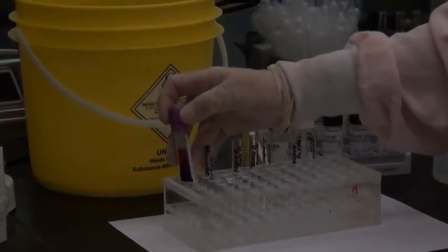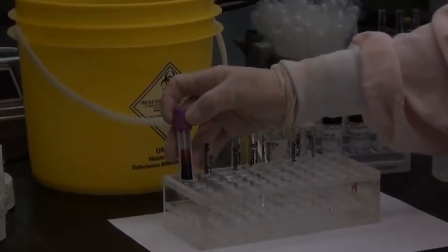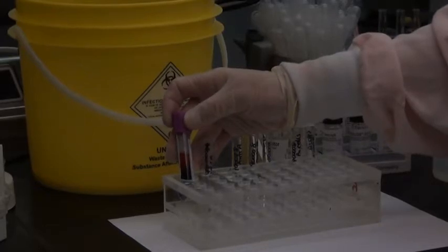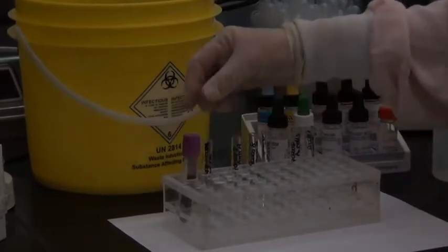So I've got plasma and cells. I know my plasma looks a little bit crazy, but our sample's a little bit old. Yours hopefully will look a little bit better.